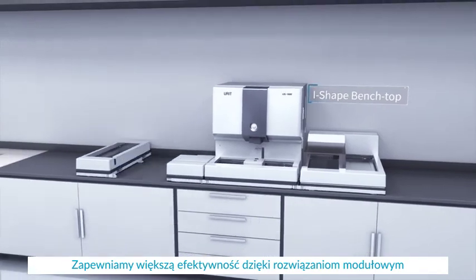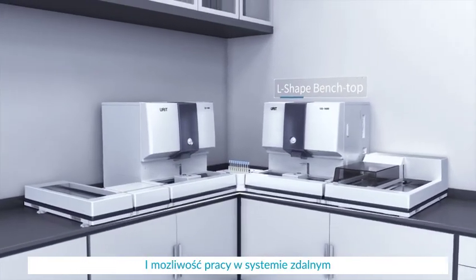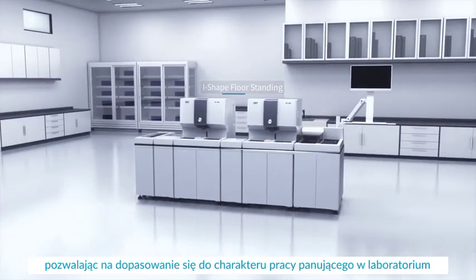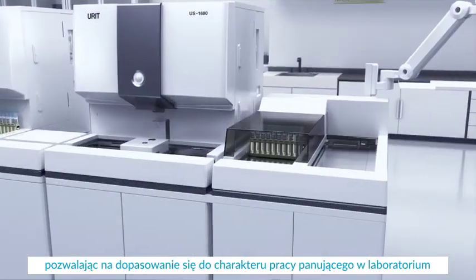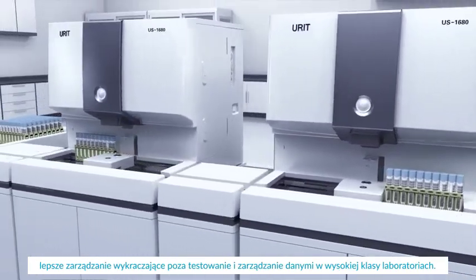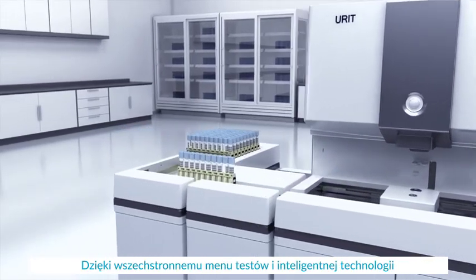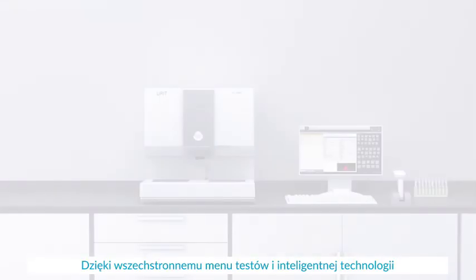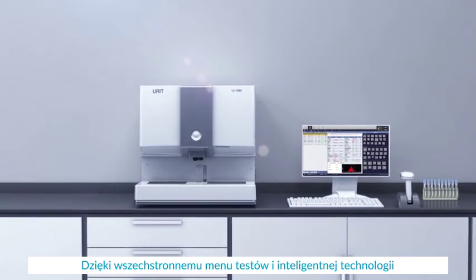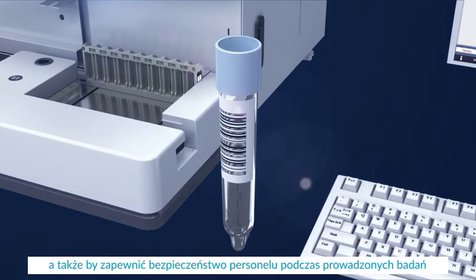We further drive laboratory efficiency by providing modular solutions and online workflow mode, adapting to various laboratory sites to better manage expanding testing and data volumes of high-end labs with a comprehensive test menu and intelligent technology.